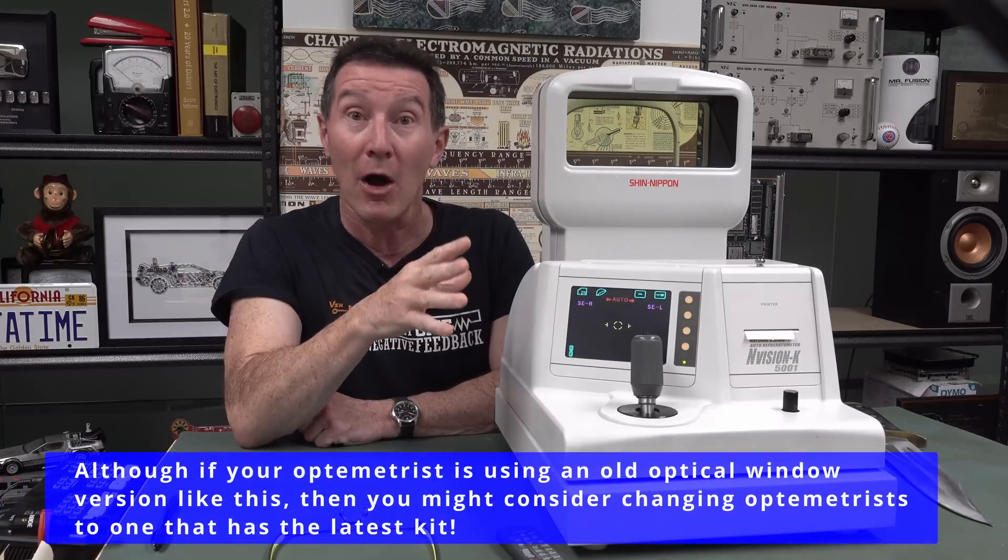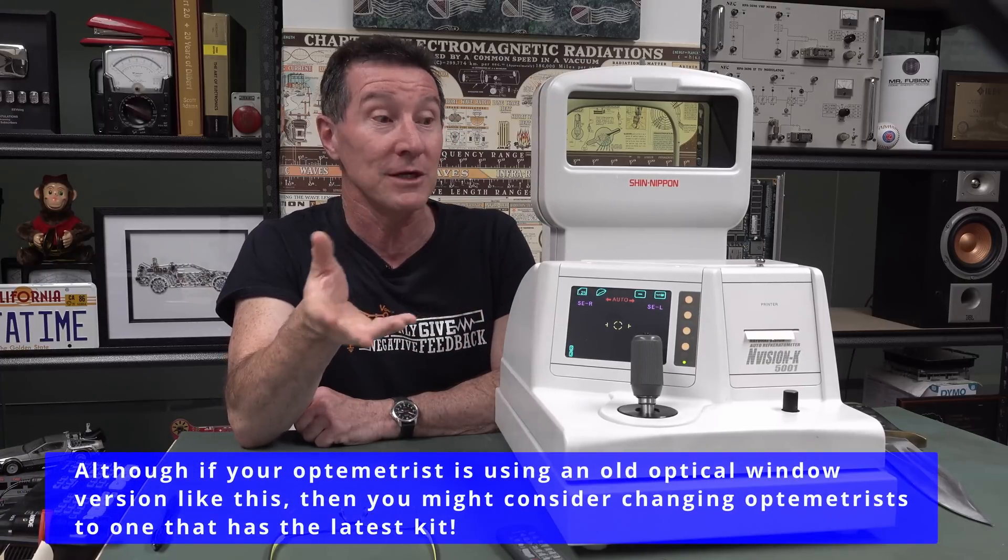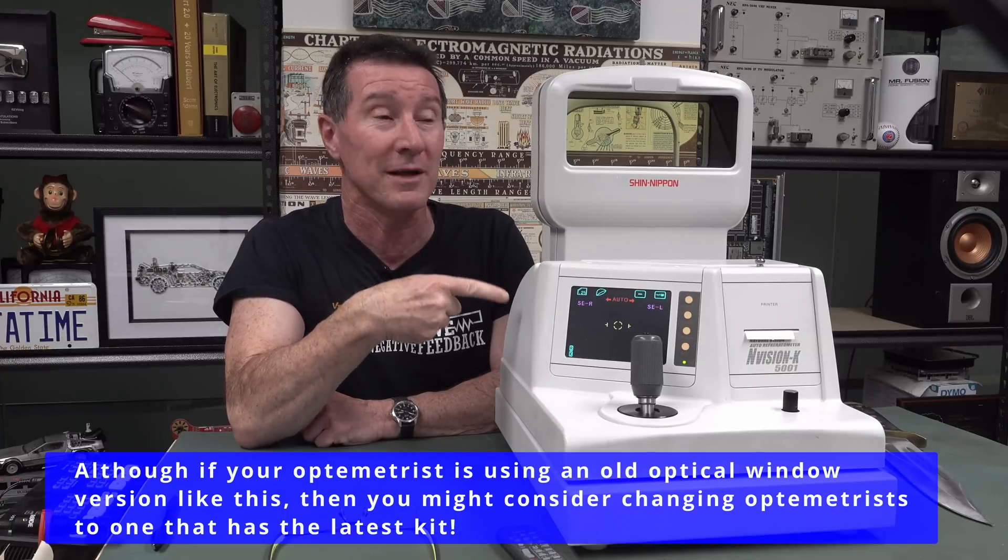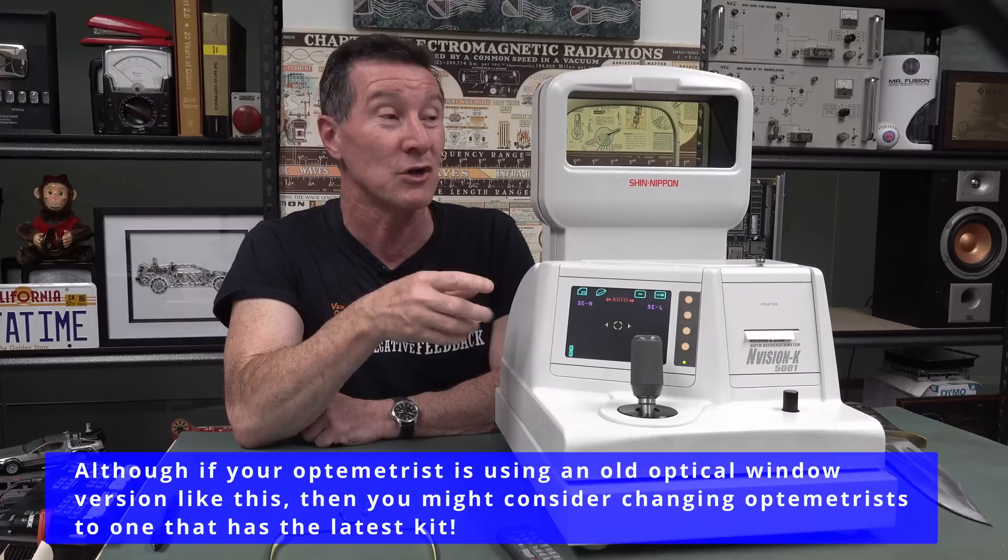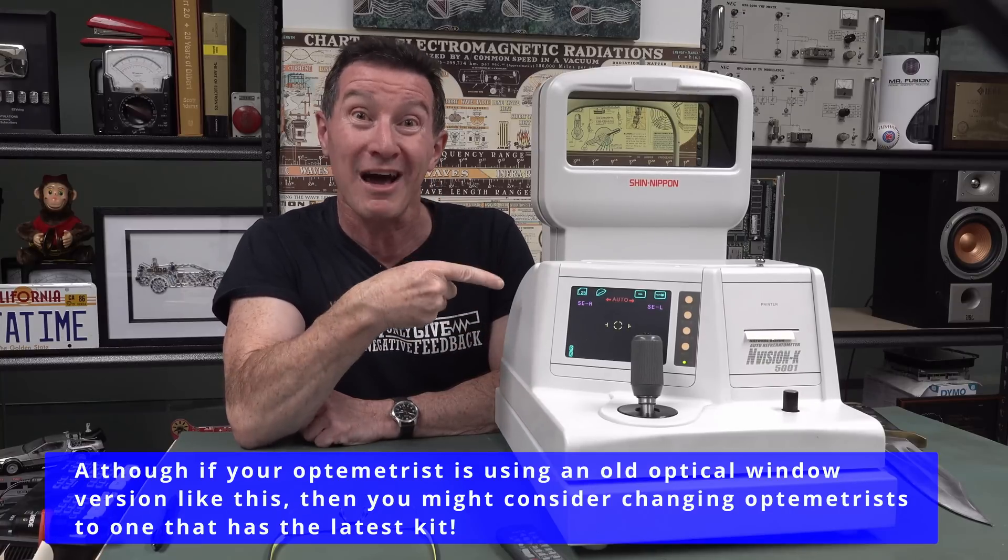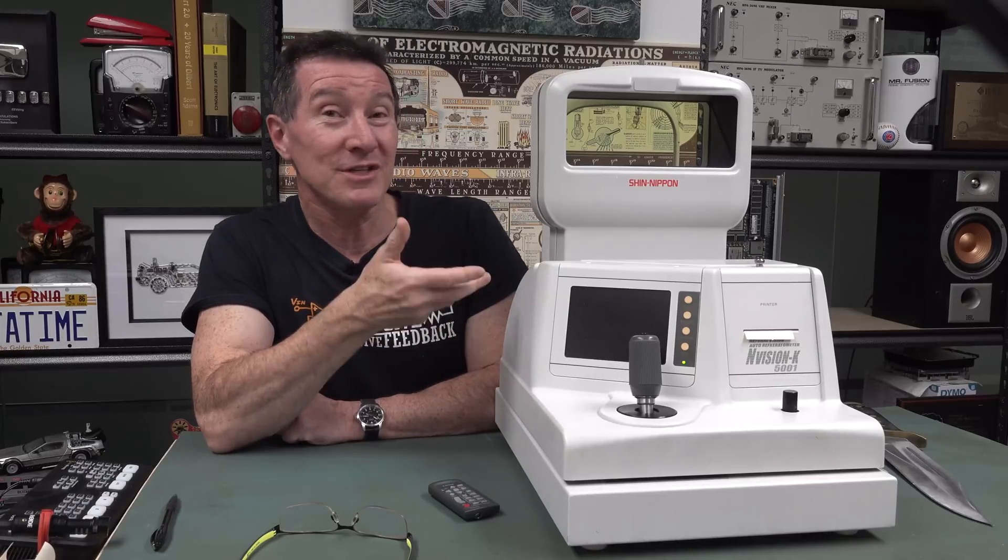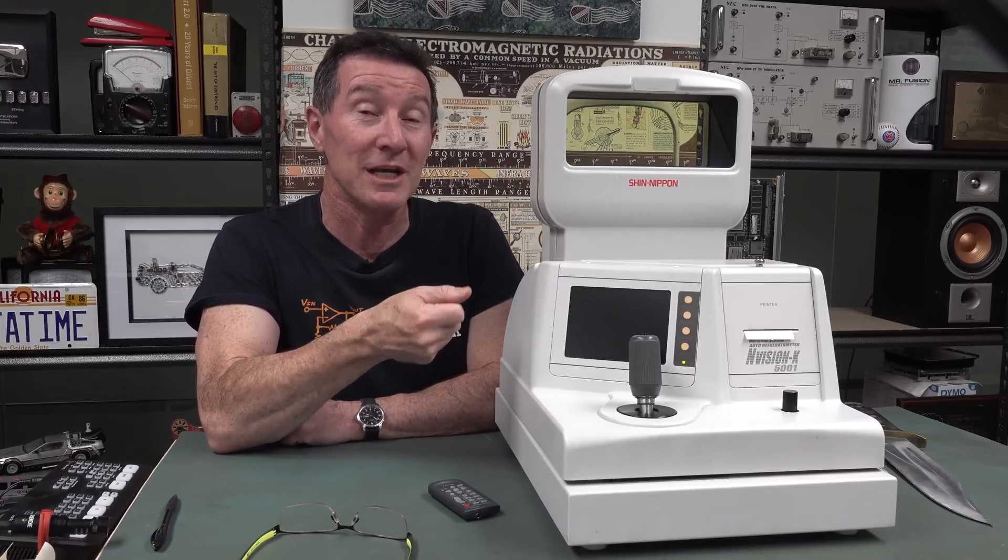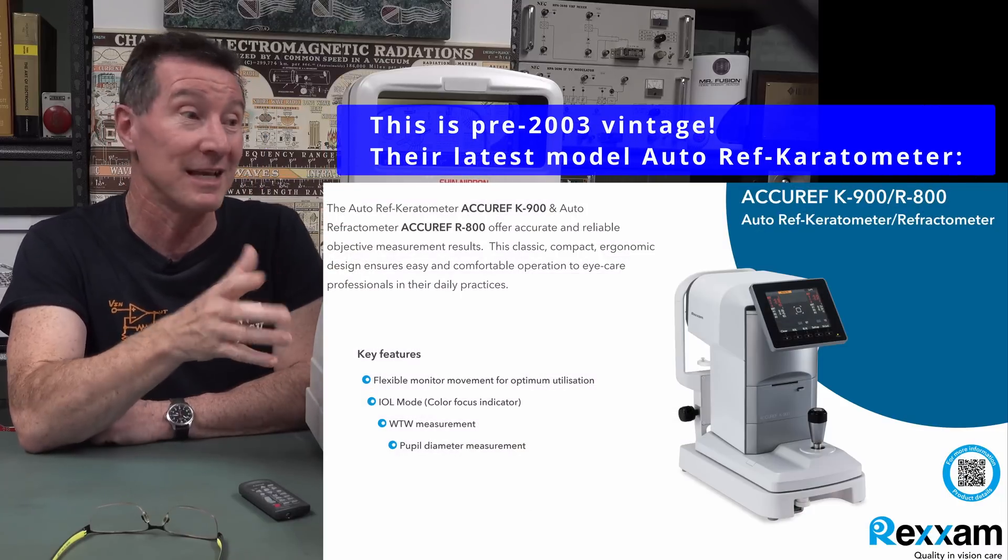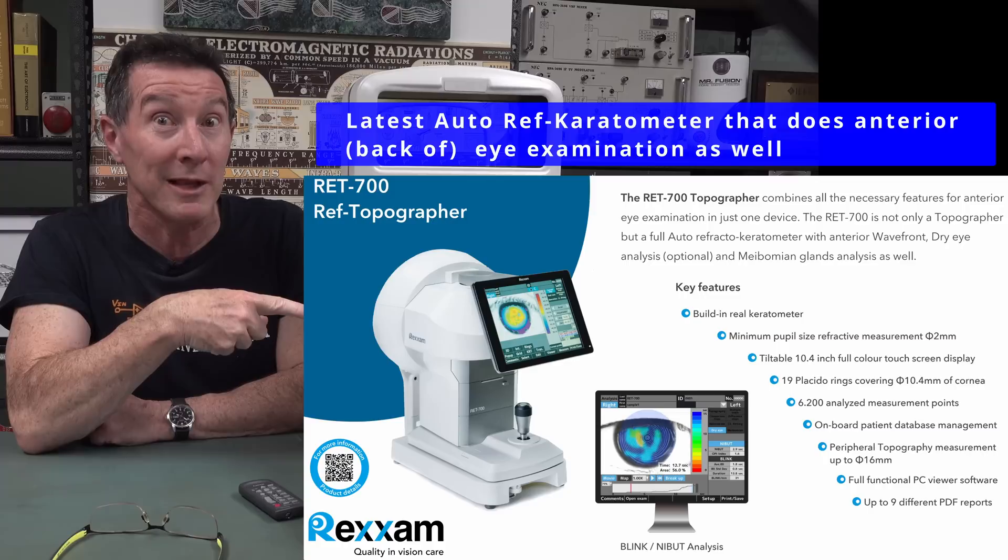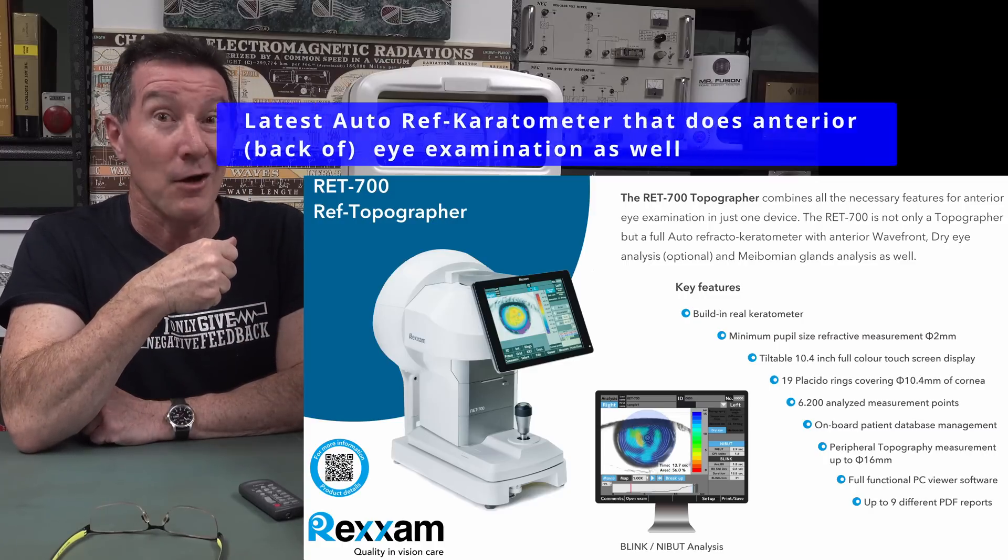So this is my optometrist. I showed this to my optometrist, who's also a researcher optometrist, and he said, yeah, this is a really cool bit of kit. Although it's very old, a lot of pioneering eye research was actually done with this particular bit of kit. This particular model is an Envision K5001 made by a Japanese company called Shin Nippon. This is an old bit of kit. I don't know what the date of this thing is, but it has an RS-232 serial port on it, a D25, none of that D9 rubbish. So yeah, I think it's a tad old.